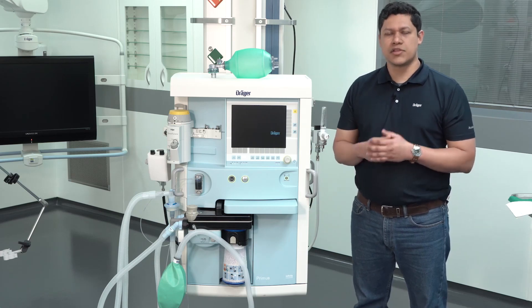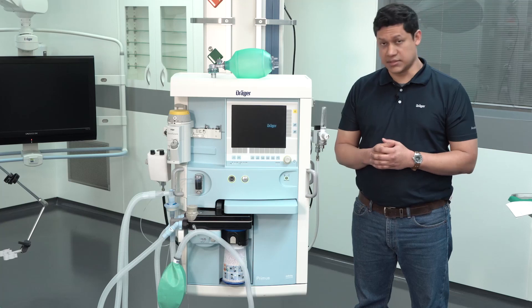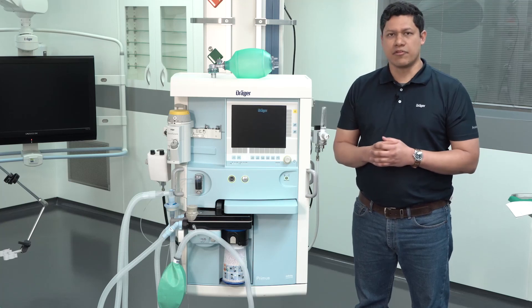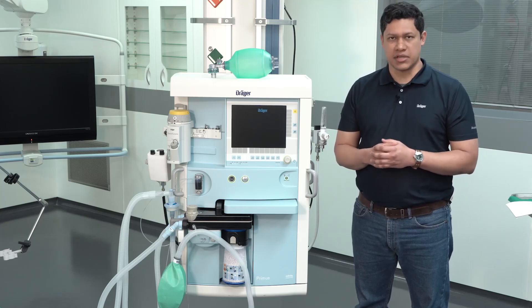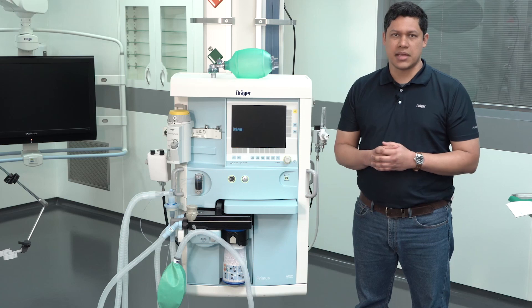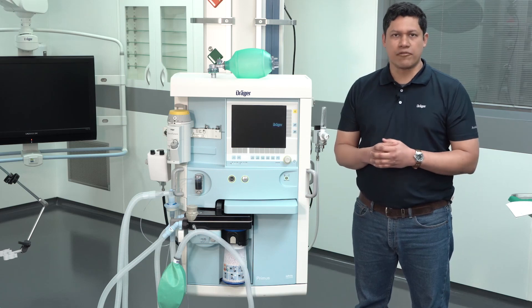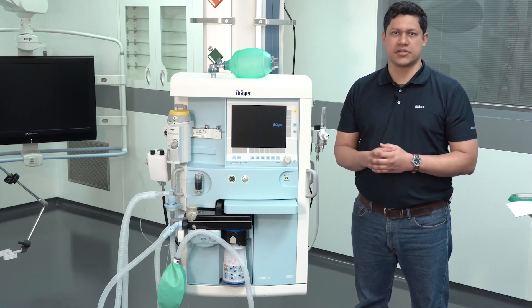Make sure an experienced user, like for example an anesthesiologist, is available for you always, 24-7. In case of any problem, call for help at an early stage.